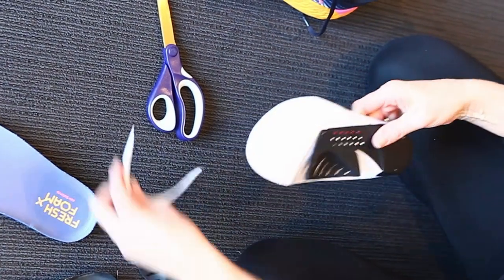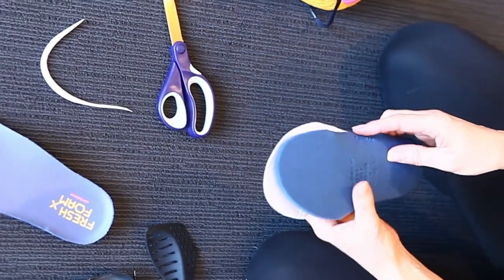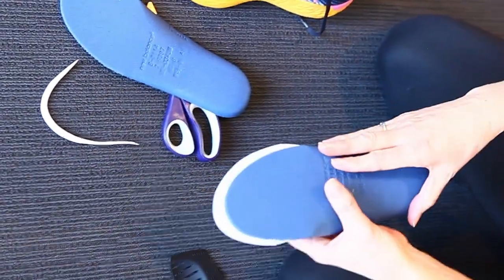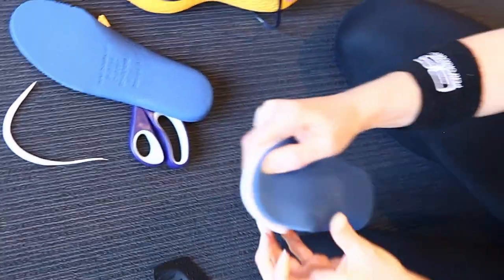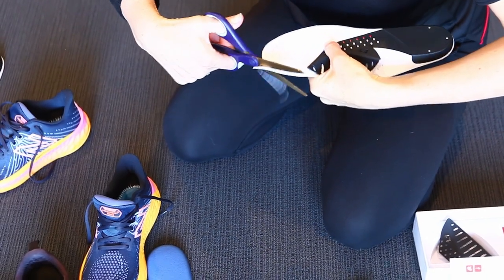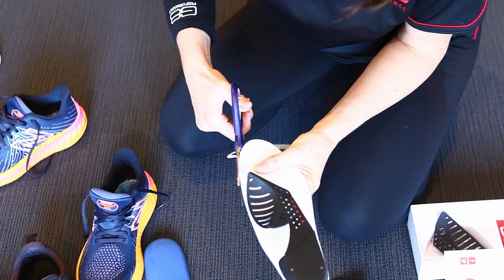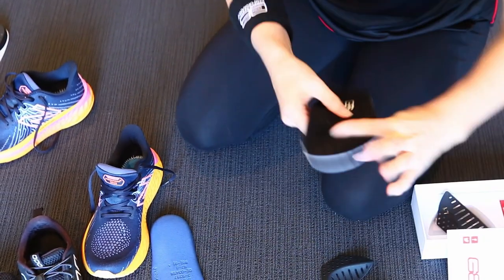They're a little bit difficult to get into the shoe, so I'm going to trim them now a little bit more because I've just kind of measured them up again and I can actually take a little bit more off. So I'm trimming them again. Voila! There we go.